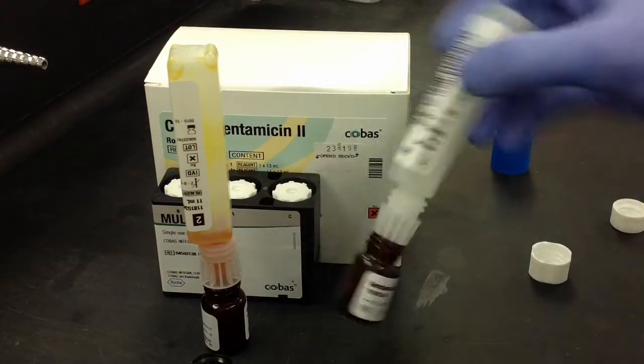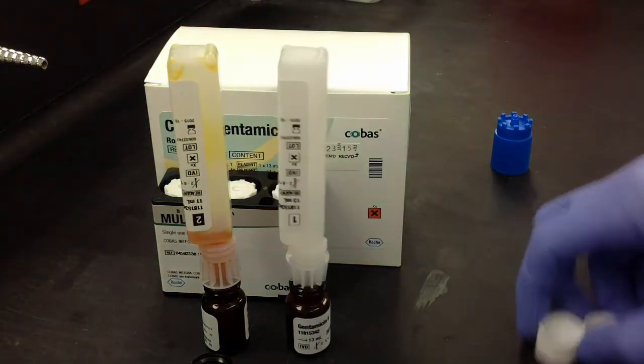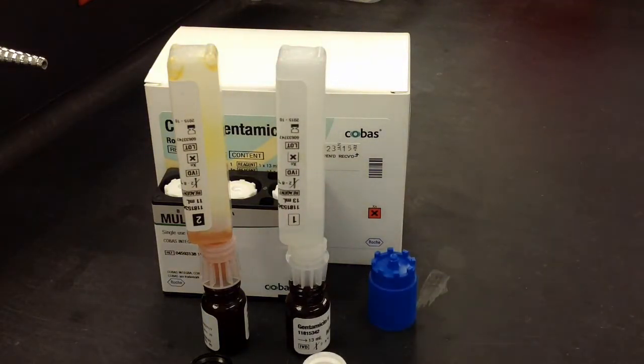And after you have these mixed to the level that you're happy with, these are recommended in the instructions to sit for five minutes before you move on to the next step.